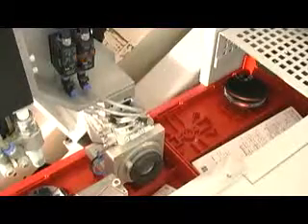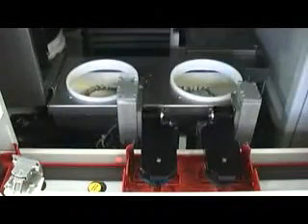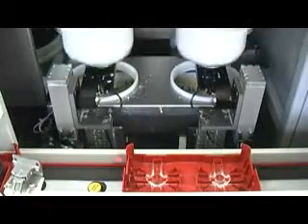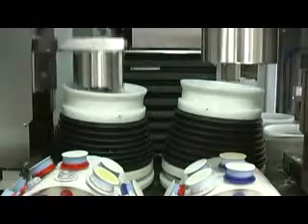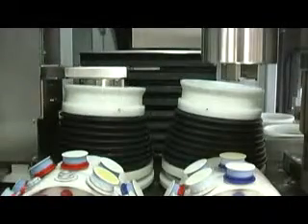The information from the prescriptor is downloaded into the laser engraver, and the laser engraves markings onto the surface of the lens. Polishing is next, and the information from the prescriptor is downloaded into the polisher. It controls what soft tools to use, the time, the spindle speeds and pressures necessary to correctly polish the lens, and maintain maximum design integrity. After the lens has been de-blocked, coatings are applied, and the lens is finished.